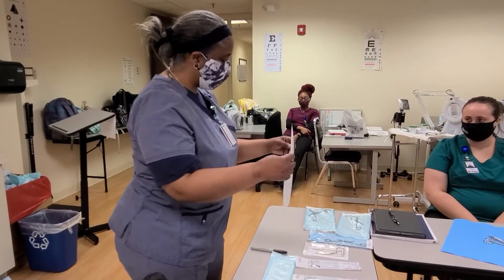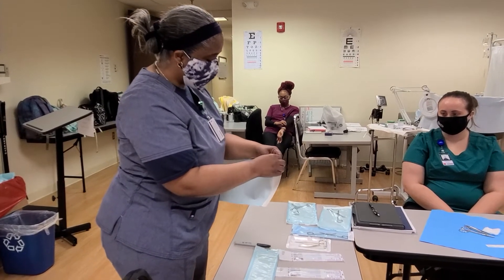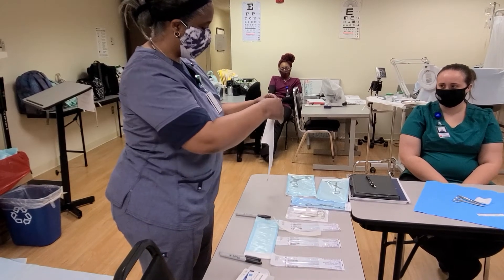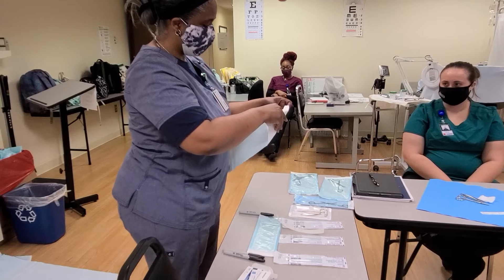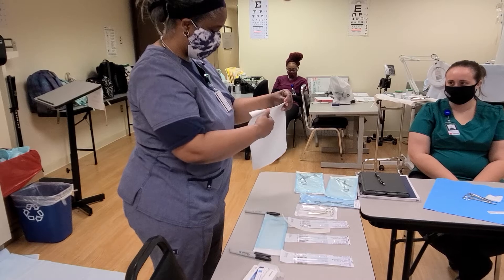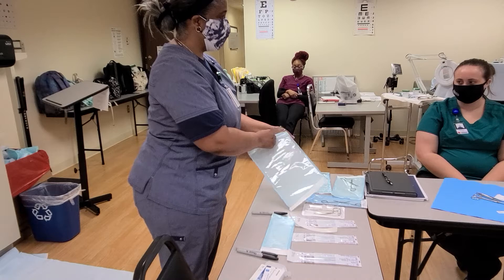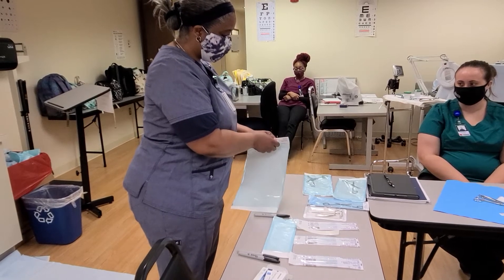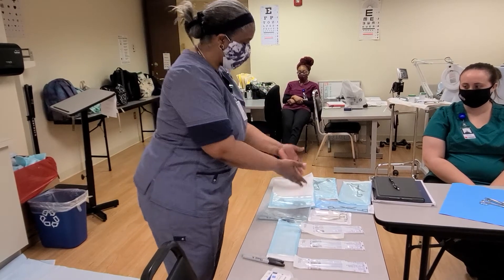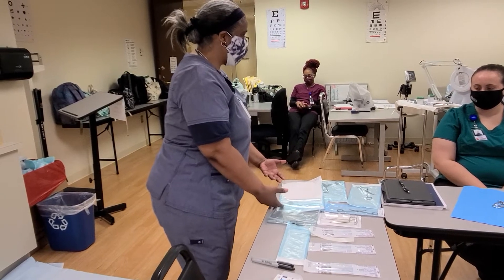When we put instruments in, this side is where we put it in. We open it up, take this little tab off, and then close it. When we open it to use, we open from the other end. What's nice is we can open it up when we have a sterile field and drop the instruments into the field, or this can be our sterile field. Anything that you open is sterile inside.